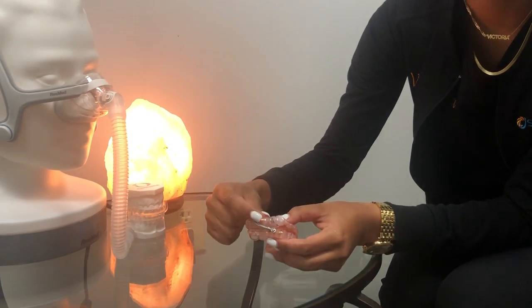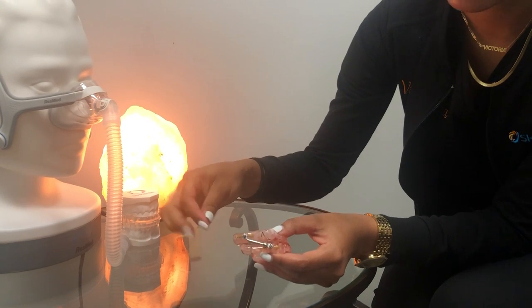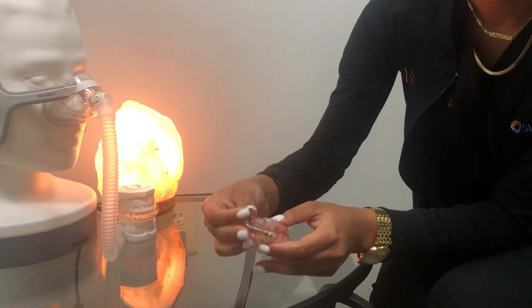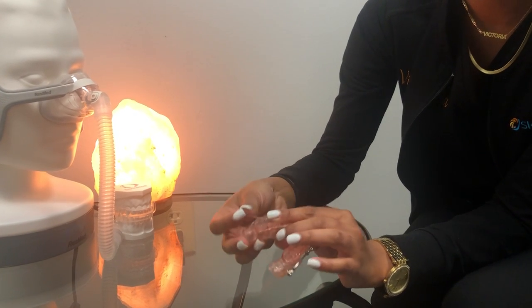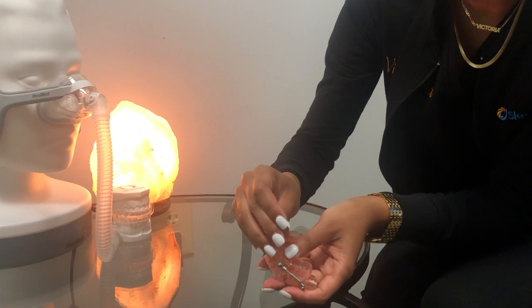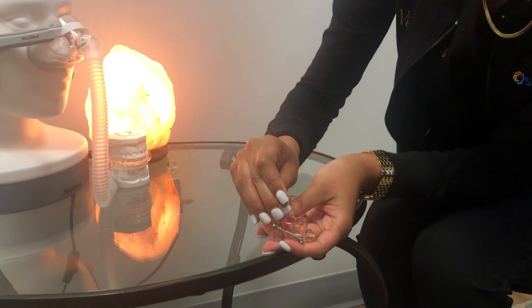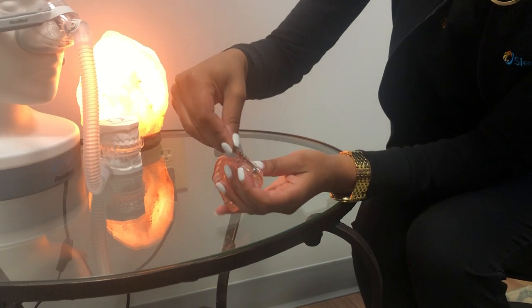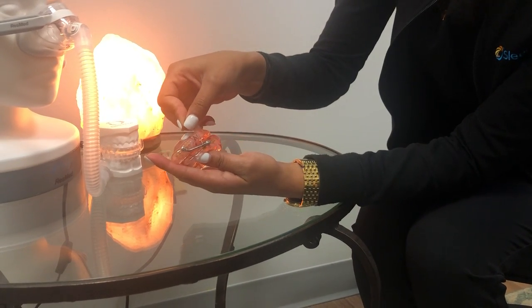Starting with the arrow pointing up, you can see there's a little screw here right next to the first nut. You're going to start from the bottom, so you will stick your key in the bottom hole just like so, and you'll make one turn all the way up until you can't anymore.